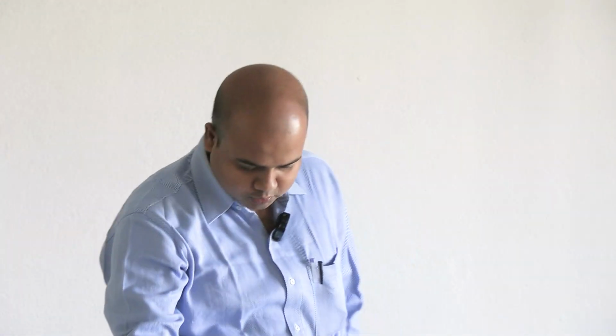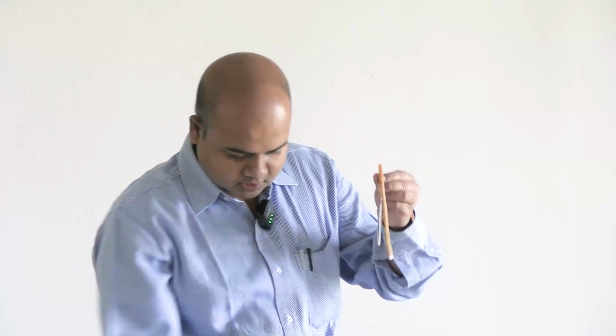So, the hemometer consists of the following things. This is something called the comparator box. The box-like structure is called the comparator box. We are coming to its use. Those who have done it already know. I think this is distilled water. Distilled water will be supplied to you, or maybe buffered water. So, the main parts of the apparatus are the comparator box, and this is the water, leave it.